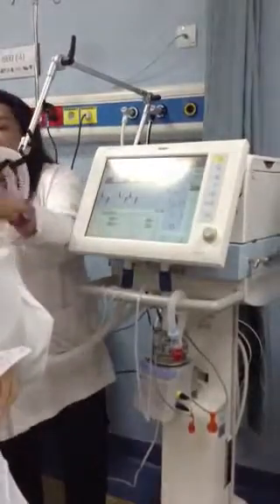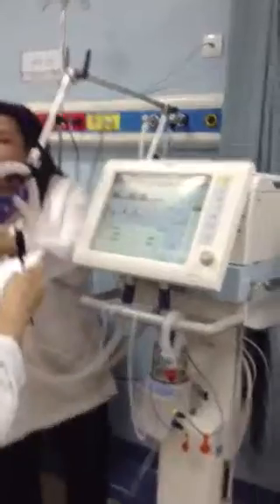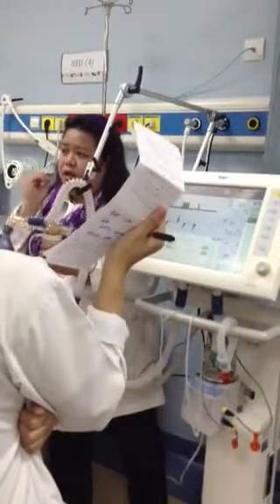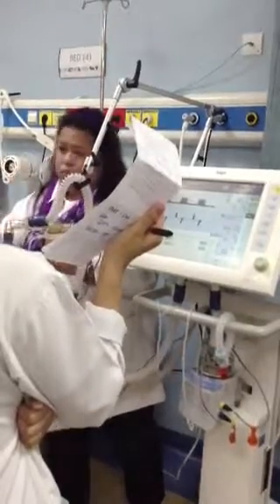Your nebulizer is always in your inspiratory limb, but I don't recommend to put this Salbutamol here continuously, because this one is very heavy, and if your patient is on tube, it will be tense.